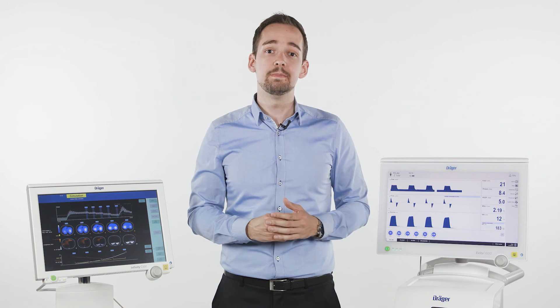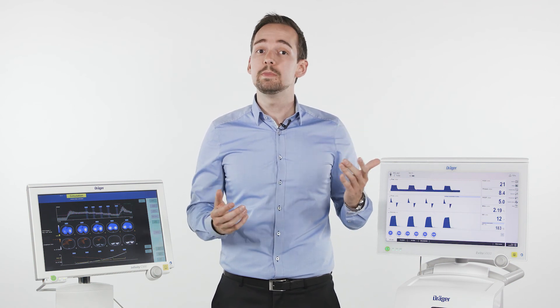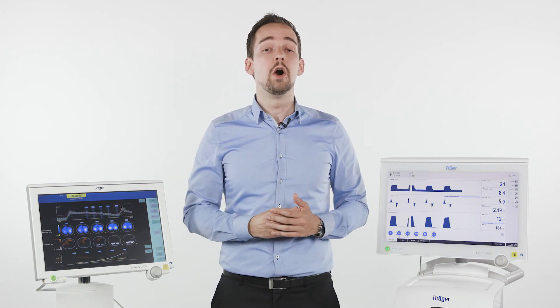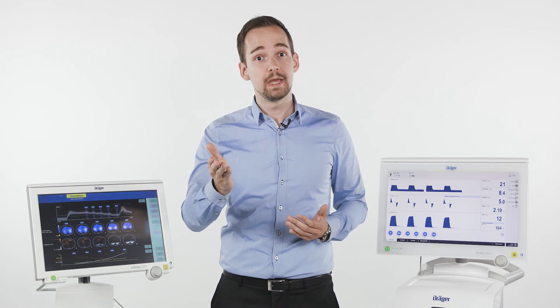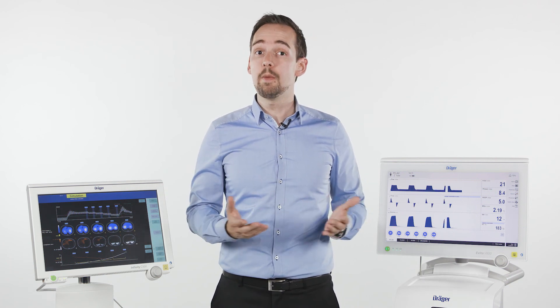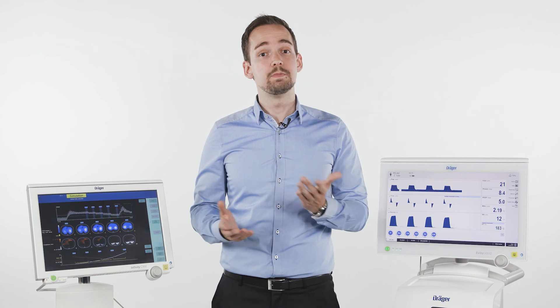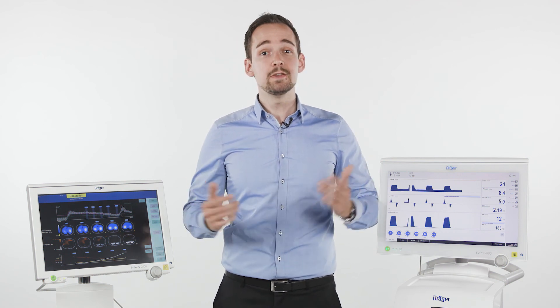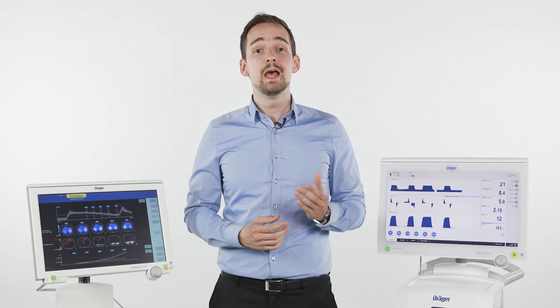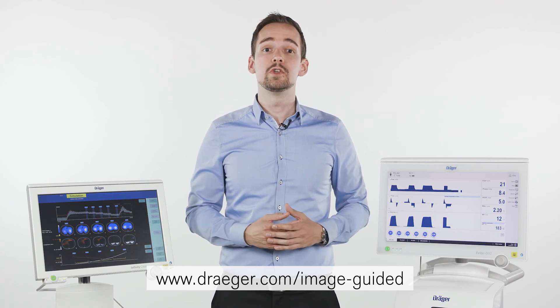Before setting the final PEEP level, it should be considered to perform a second recruitment maneuver to reopen possibly collapsed regions. This is one possible workflow on how to find the individual PEEP for your patient. By the way, if you are interested in this analysis in the perioperative setting, the Perseus A500 anesthesia device supports an automated PEEP trial. Thank you so much for listening to this tutorial. If you would like to learn more about image-guided lung protection, please visit draeger.com/imageguided or contact your local Draeger representative.